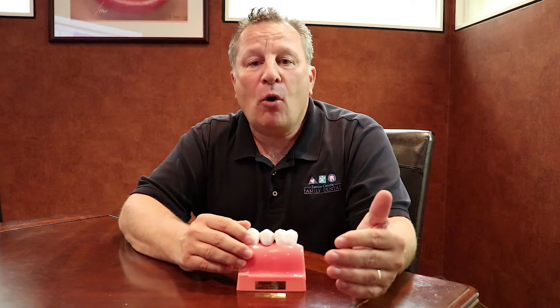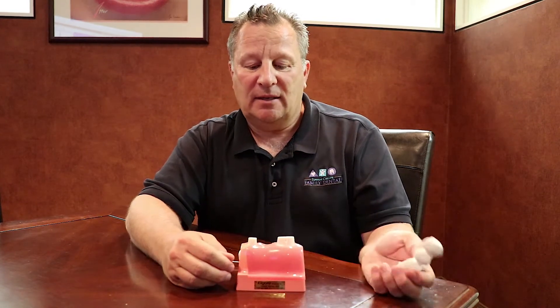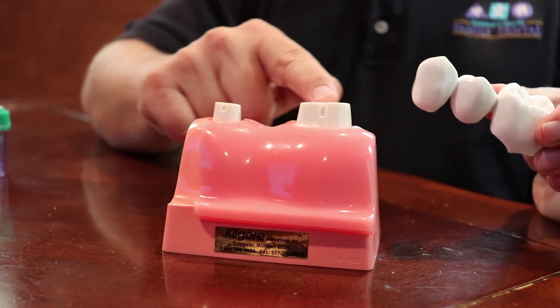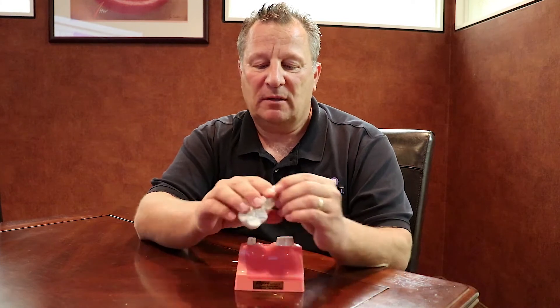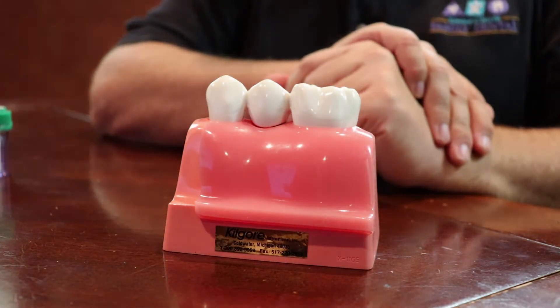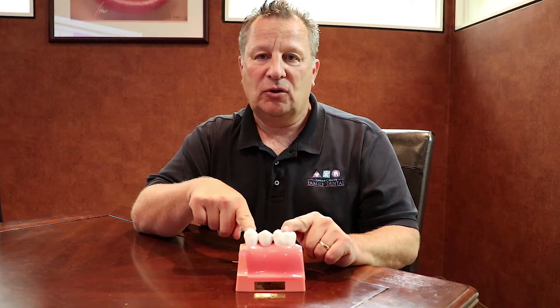A bridge is commonly used to replace any missing teeth. It could be a molar in the back or even a front tooth. A bridge on a molar typically has a front tooth and a back tooth that replaces a missing tooth in the middle, and in this case it looks kind of like this. A tooth is shaped around, another one is shaped around, and then a bridge — which is a three-tooth replacement — is permanently glued over those teeth so that you can get three teeth where there were only two before.